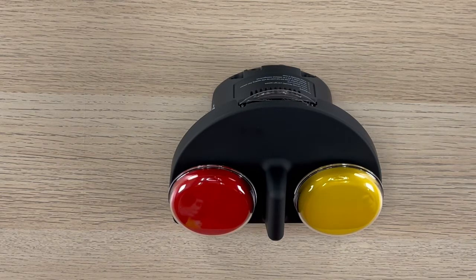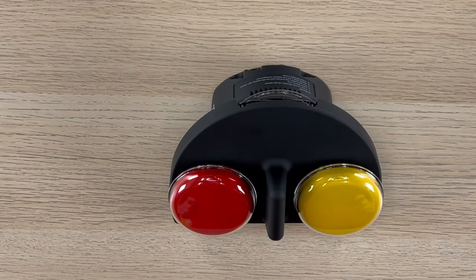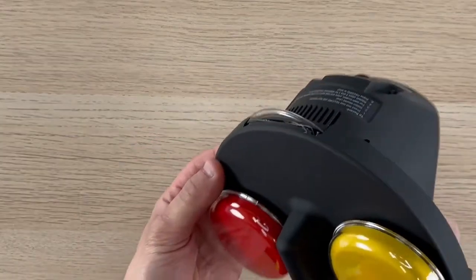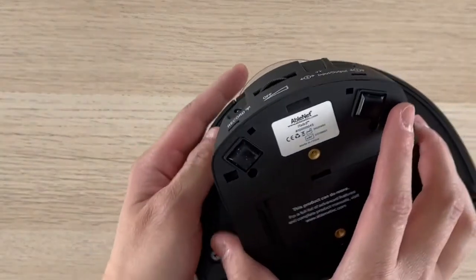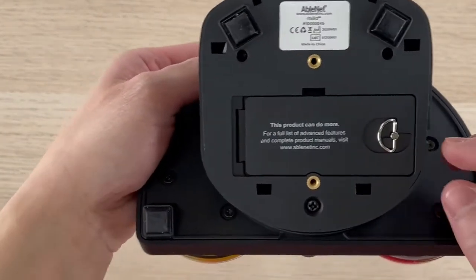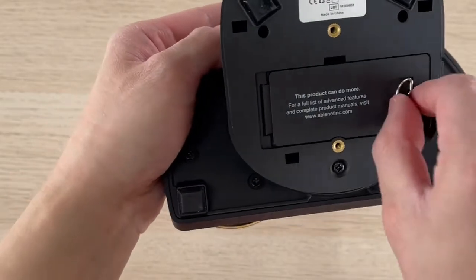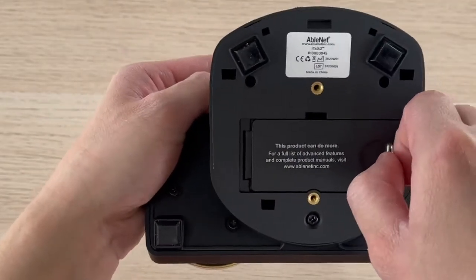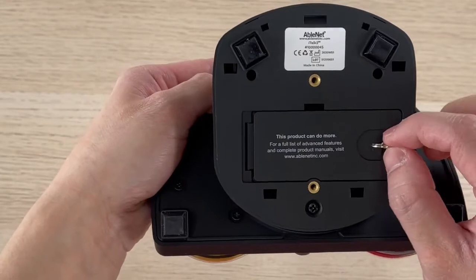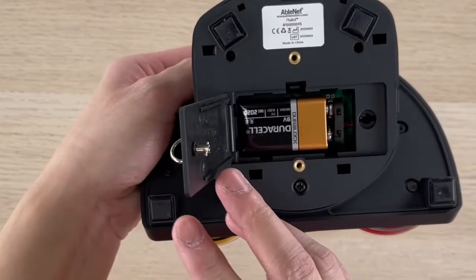Let's start by checking if the device has batteries. On the bottom of the device, there is a battery door with a D-shaped clip. Pull it up and turn it counter-clockwise to unlatch, then you can open the battery door.